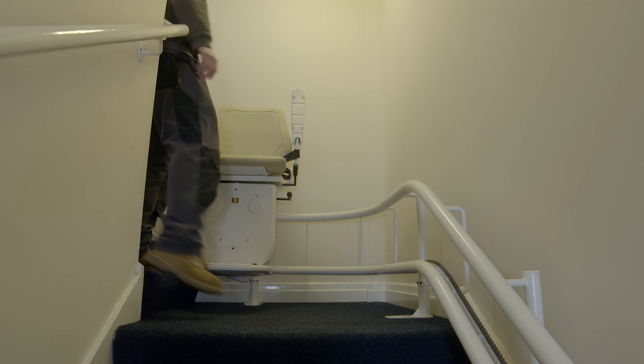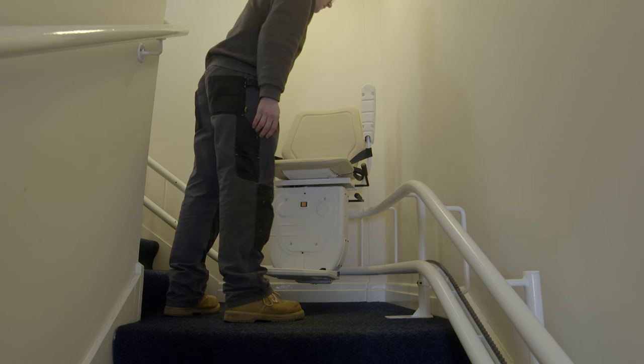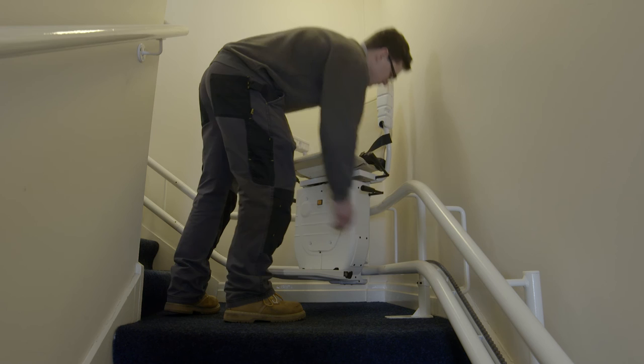Stage 6: Safety and troubleshooting. Here we are going to check the stopping safety features. First, move the stairlift to a convenient position.